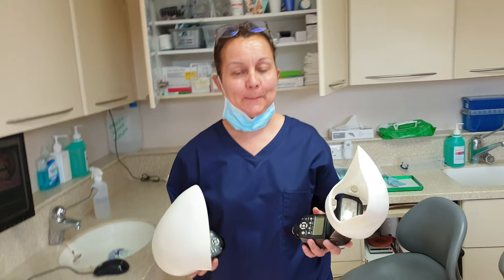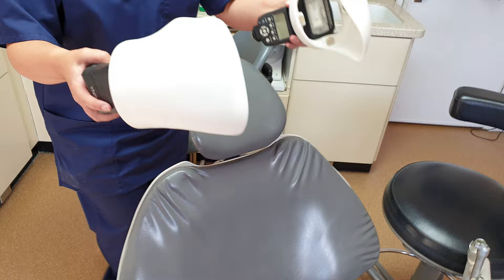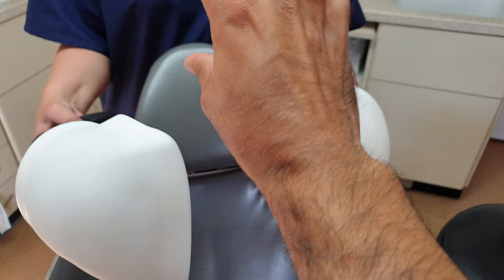My lovely nurse Zoe is modeling the flashes that I've been using. Can you show exactly when I'm taking my photos? The patient is usually here — I've got my camera, Zoe's positioned like that, and my lens will just fit through here as a receiver at the end of it. Then the flash comes off, and that's how I've been getting the softer lighting.